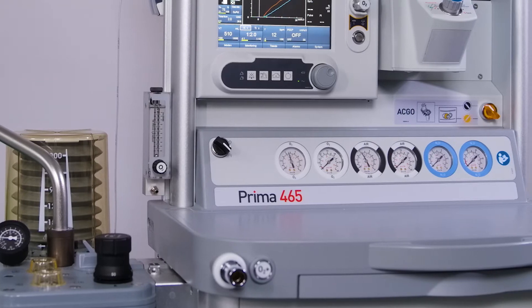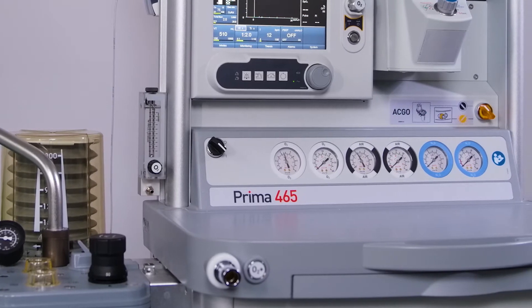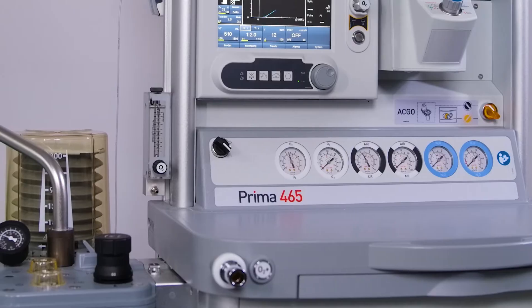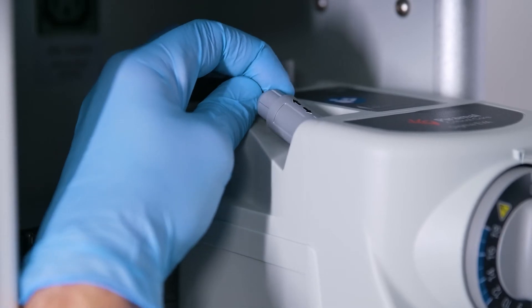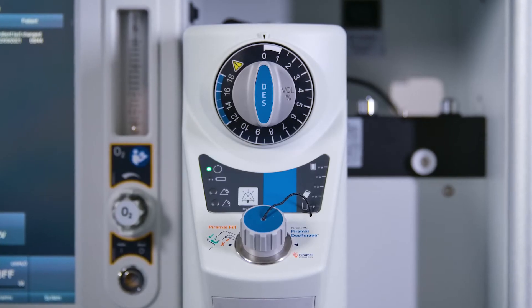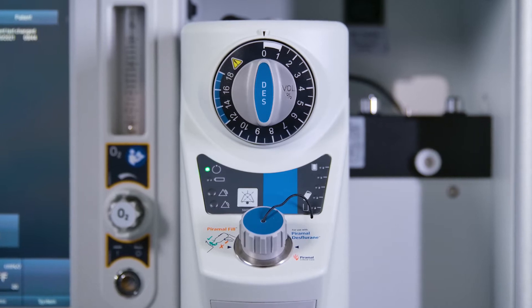For the correct installation and operation, refer to the user manual for your anesthetic machine. Connecting the power supply. Connect the electrical power supply cable to the socket on the vaporizer top assembly. The power indicator will flash when the power is first connected.